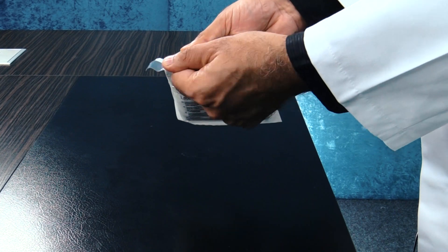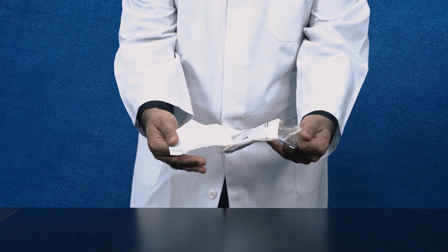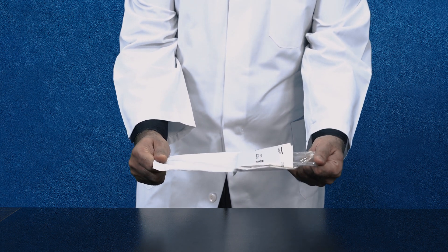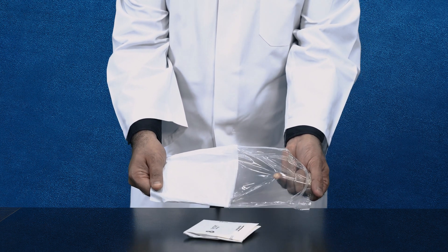When you're opening the gloves, make sure you have a surface where you will push it out. So this is a sterile surface on which I'll put my gloves.